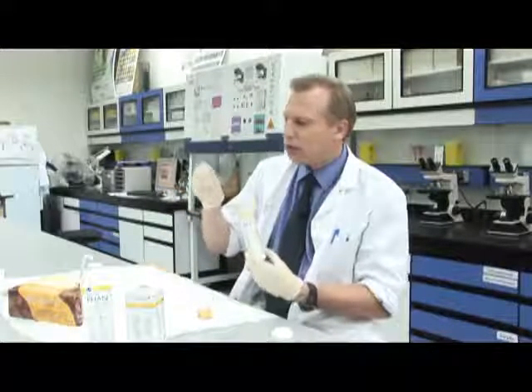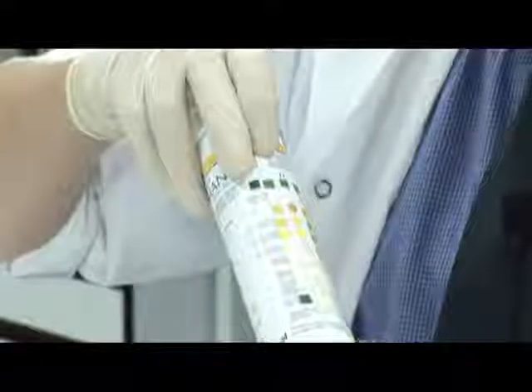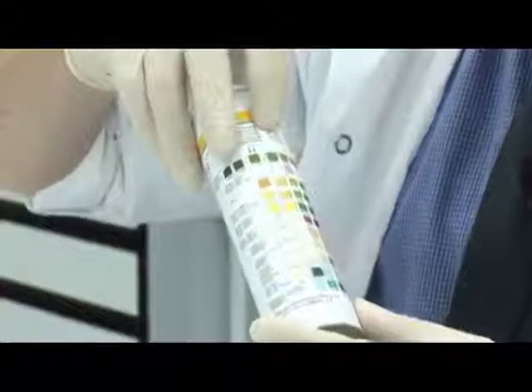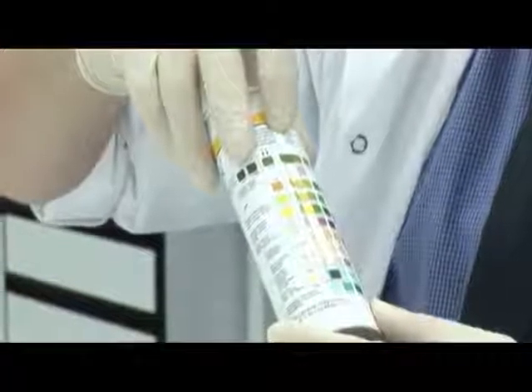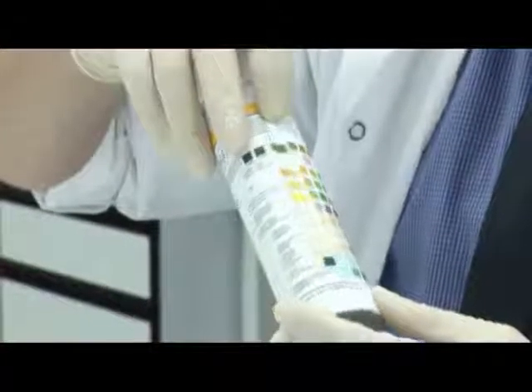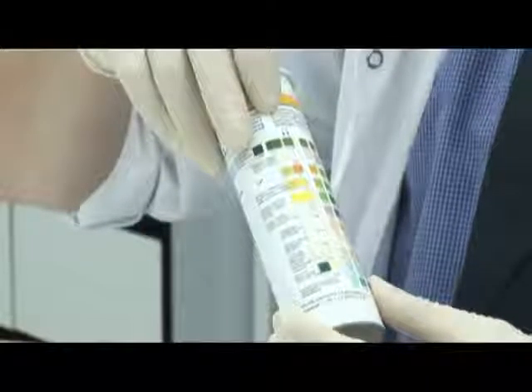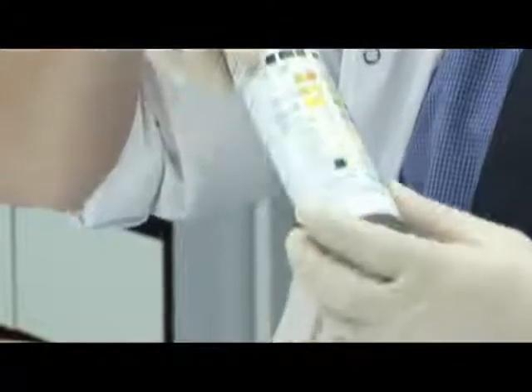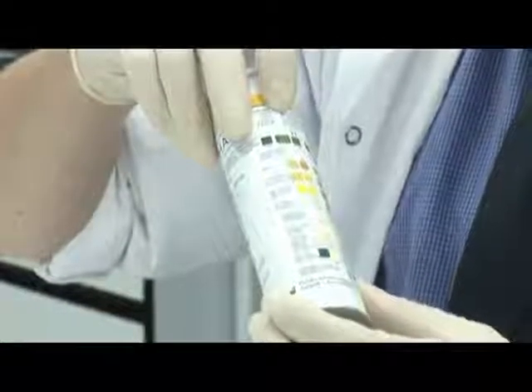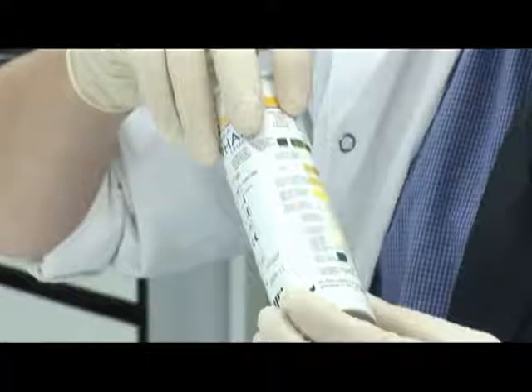Okay, we're getting a strong colour reaction there on the end. So if we hold it up to the vial like this, and then look along it, making sure I've aligned the squares properly, I'll start at the bottom, and we've got quite a strong blue colour down there. So this one is the test for blood. Normally if it's negative, I should get a yellow colour. Instead I'm getting quite a strong dark blue, and if I align it with the next colour, this one here, that means there is a strong amount of blood in this sample. There's lots of blood, a significant amount of blood. So that's quite a strong reaction.